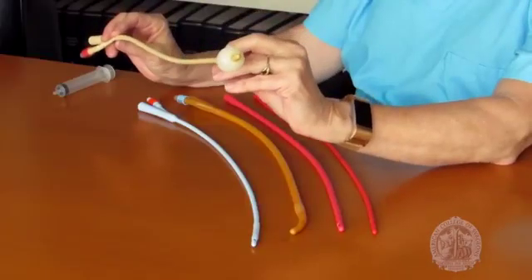I've talked about both indwelling and non-indwelling catheters, so it's probably a good time to discuss that a little more. Indwelling catheters, such as this one, are placed under sterile conditions and have a balloon at the end to ensure that they stay inside the bladder. They're used when the patient will need catheterization for several days. The most common type of indwelling catheter is a Foley catheter, like this one.